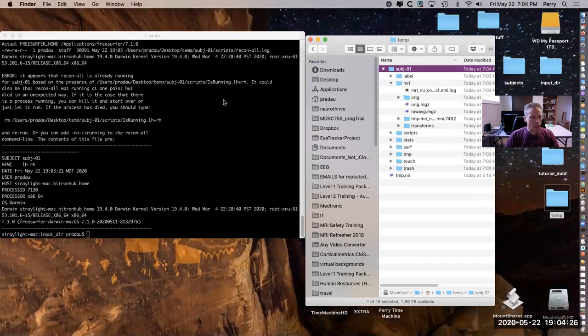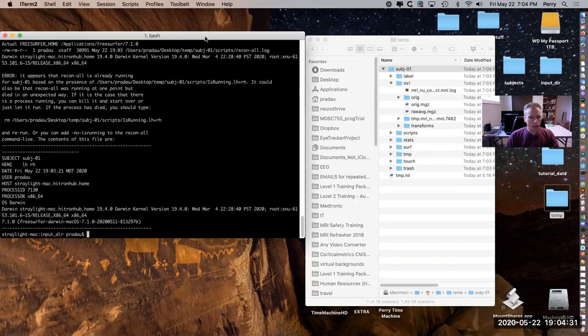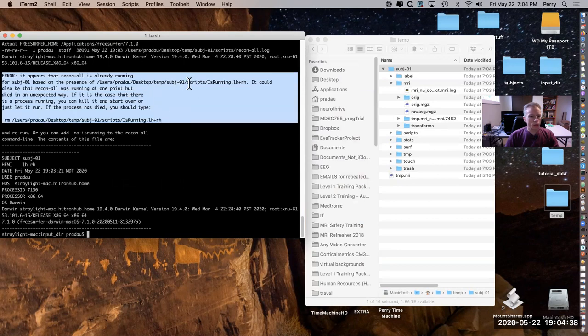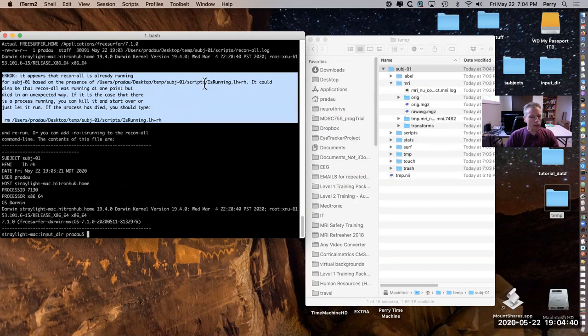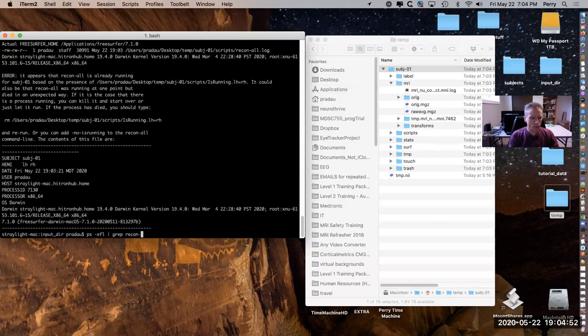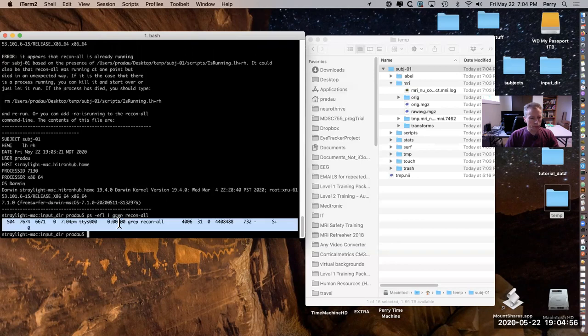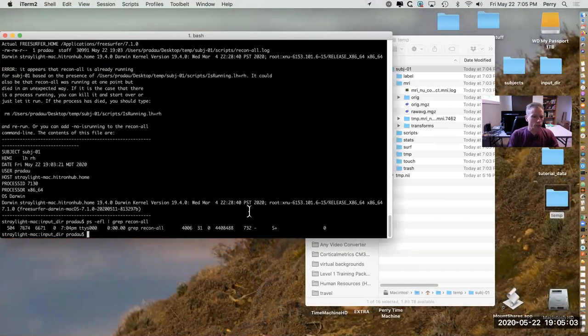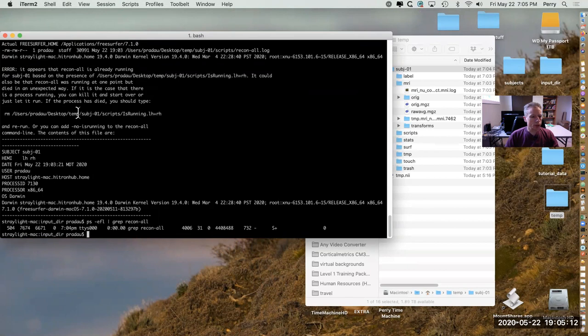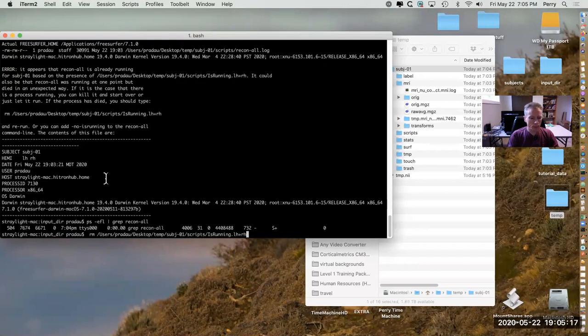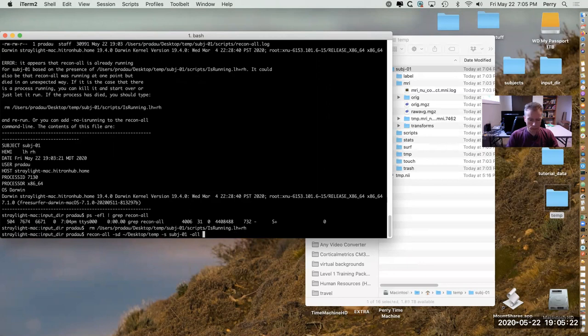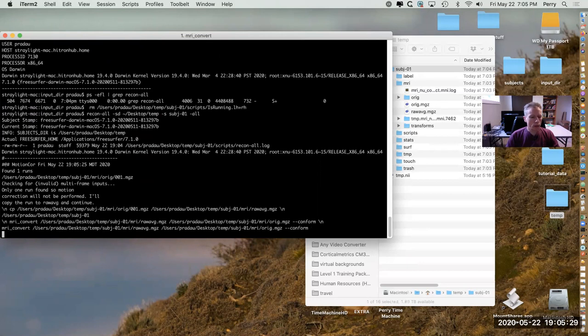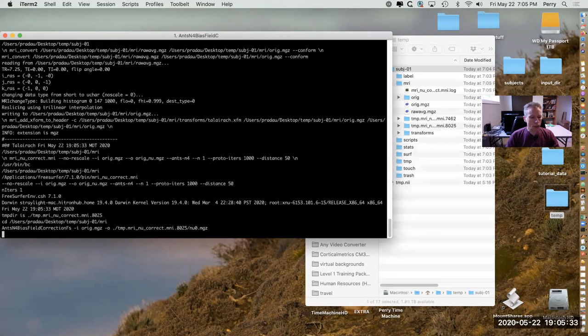One more problem that can come up is shown here. It's errored out and it's saying that it looks like recon-all is already running because this lock file exists. If I check my processes, there is a line for this but this is just the grep line I just did, so recon-all is not running - I actually quit it. It did kill but it did not get rid of this lock file, so what I need to do is this line. I'm just copying and pasting. Now I should be able to run this properly. Okay, so now it's able to continue on with the recon-all after I made those changes.